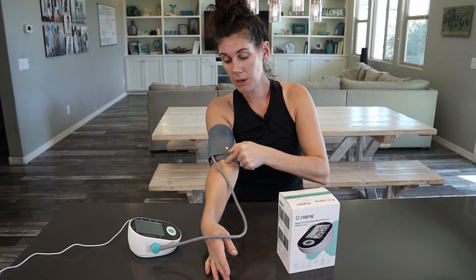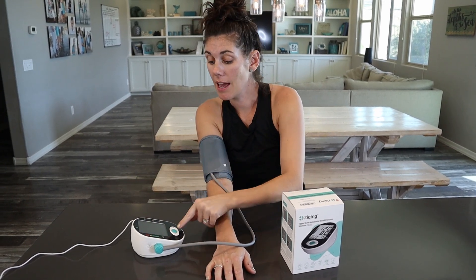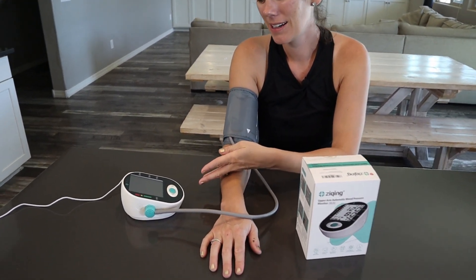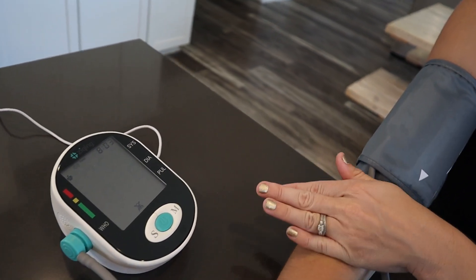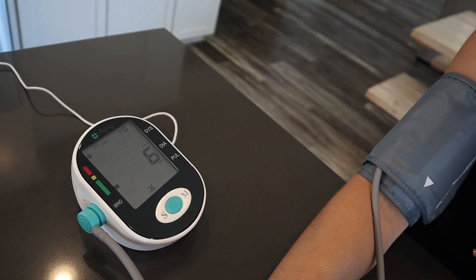The arrow is pretty close to your artery right here. It's USB powered, and all you have to do is turn it on. It'll automatically start and it's going to voice broadcast telling you what to do.